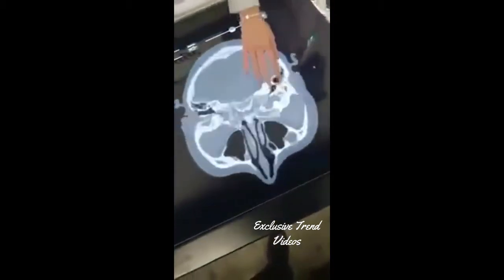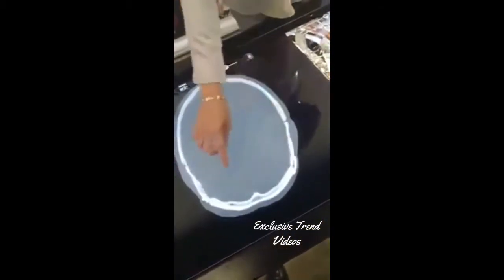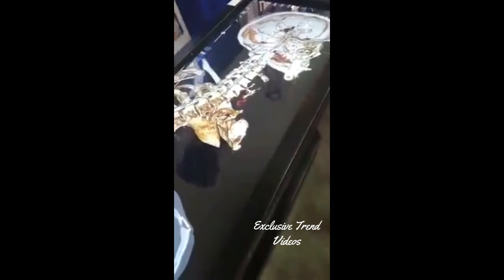Most interestingly, you can load in your own patient's CT or MRI scan and get a 3D model of what you see. Here we have a post-operative scan of a patient's brain. This is the actual CT that was provided — you can slide through it and see exactly where the clips were placed. You can also make a clip cut into the 3D model to see where the clips were placed, which is more intuitive than just reviewing a flat CT scan.